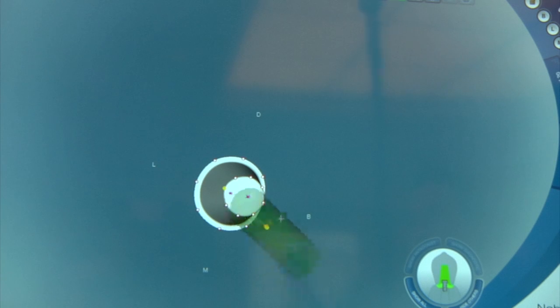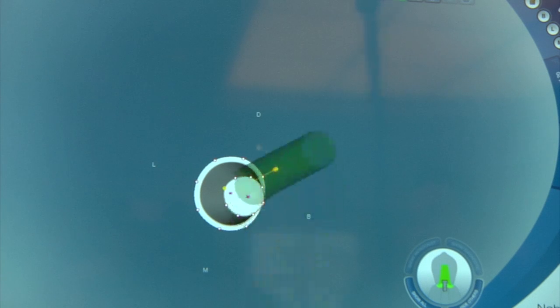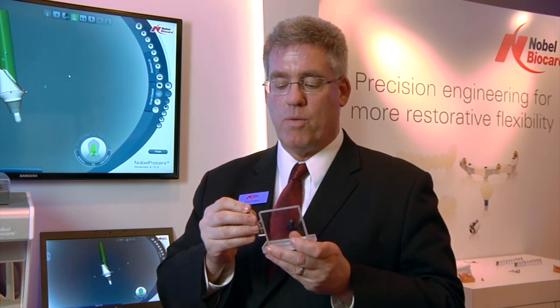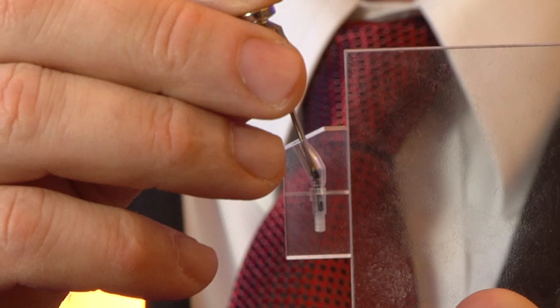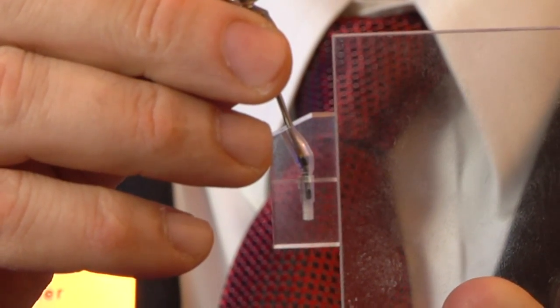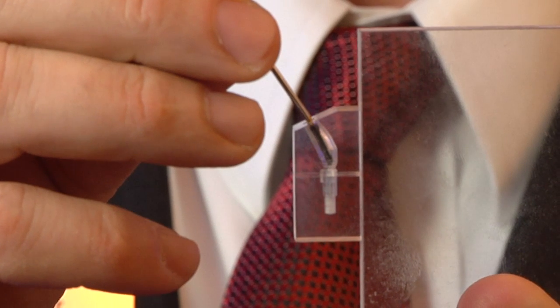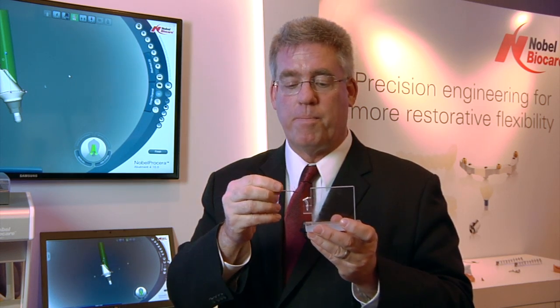We can also change the direction up to 360 degrees. One of the key components to the angulated screw channel for our clinicians is going to be the way that they are able to work with the new screw and driver, such that retrievability and maneuverability of the screw is very simple and secure.